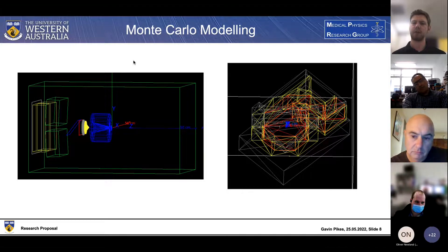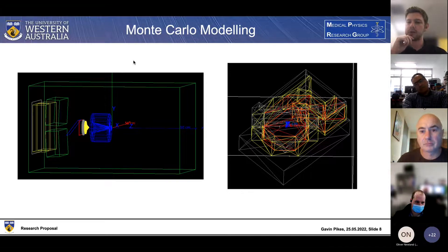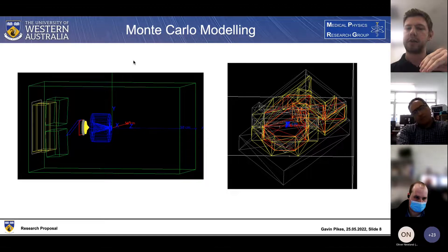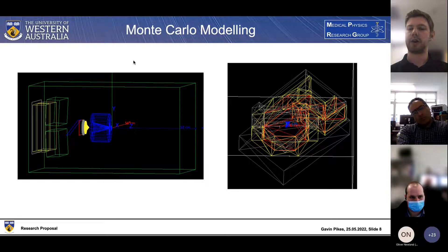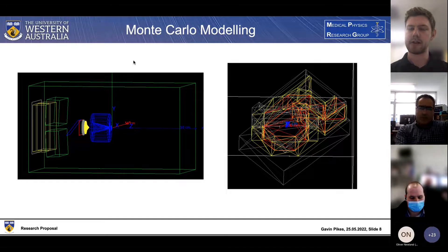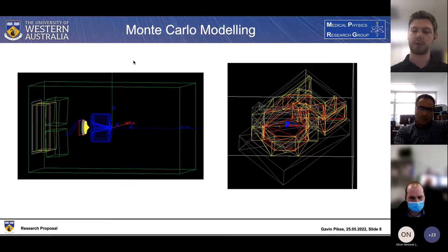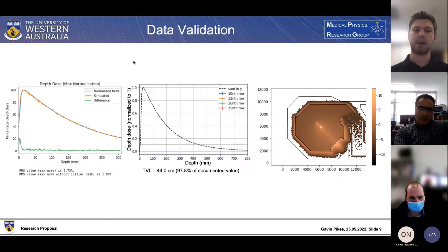On the right-hand side you can see a mesh model of the bunker we've created. In yellow are the walls of the bunker, in grey are the roof and floor, red is an air box created within the bunker, and in blue is the water phantom we're taking depth dose measurements in. There's also a little white line in the center which is our phase space plane producing all our radiation particles.